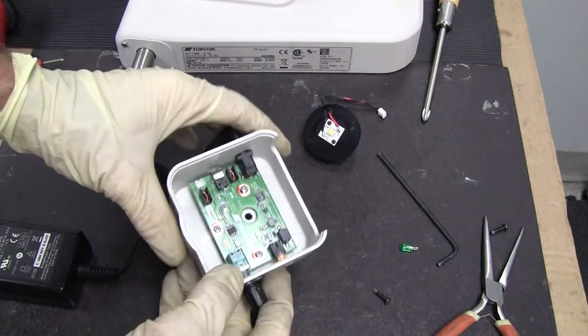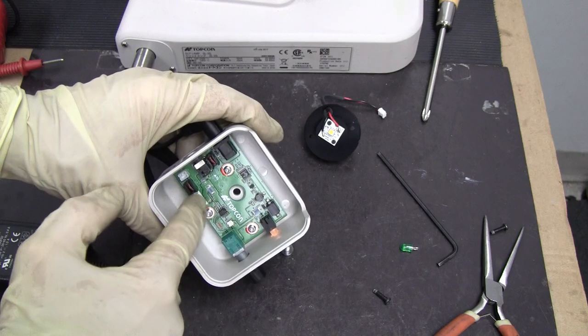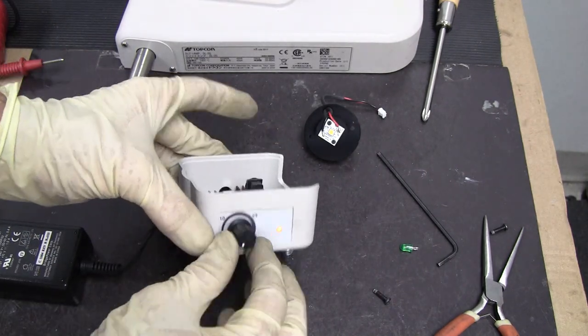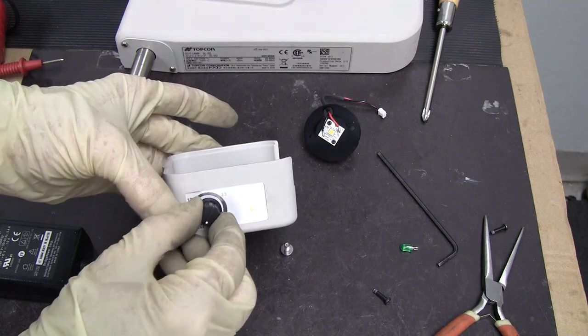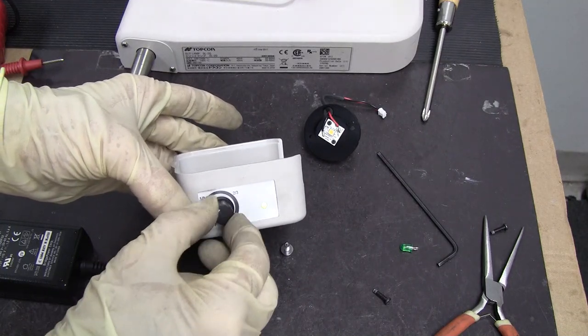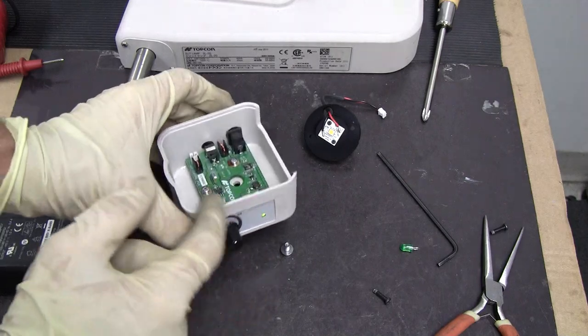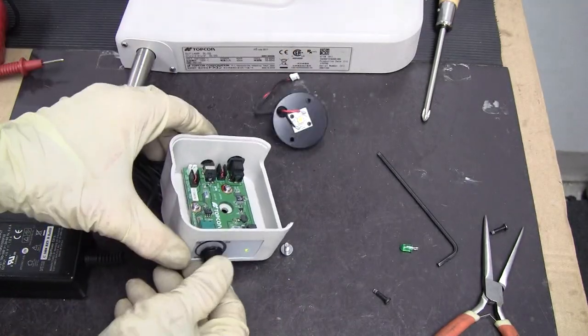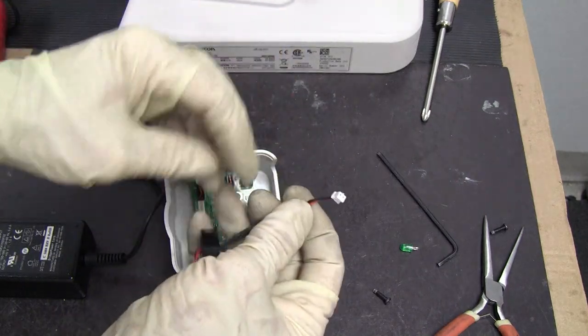It's very possible that this board is bad. When you turn the rheostat on, it's going to turn green and power your LED.